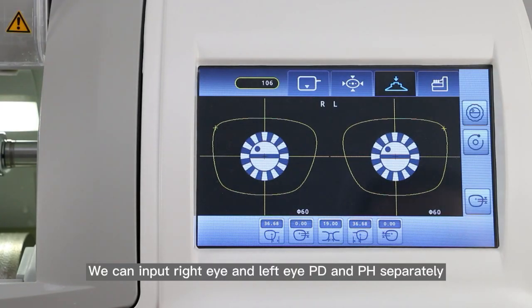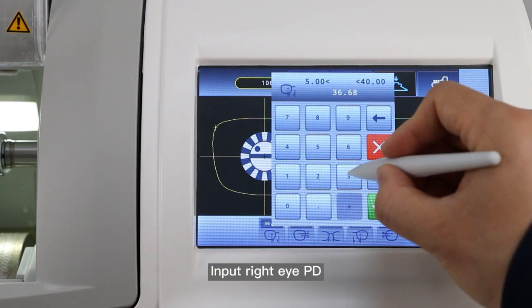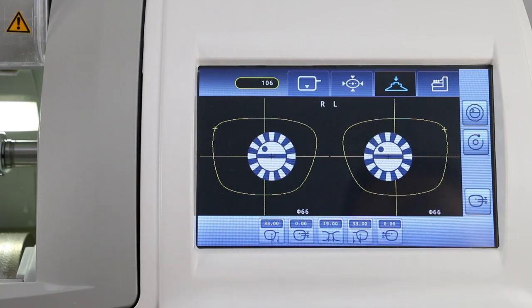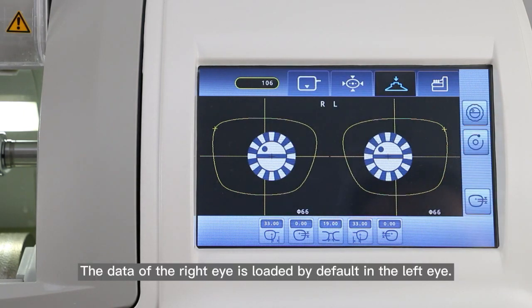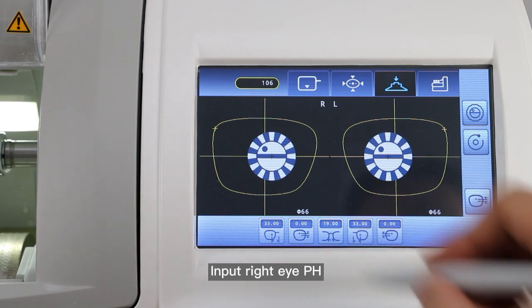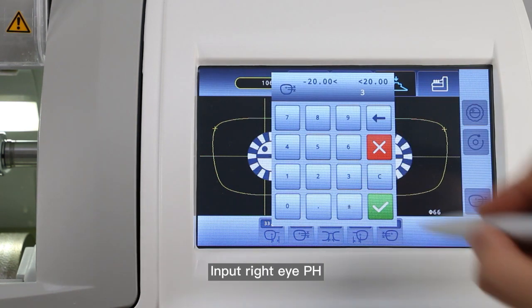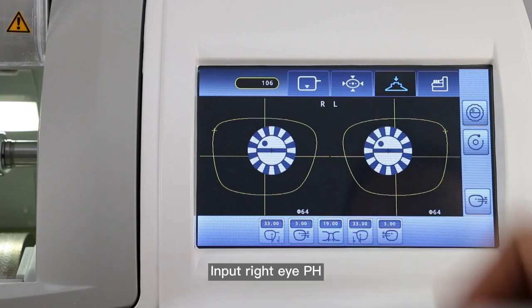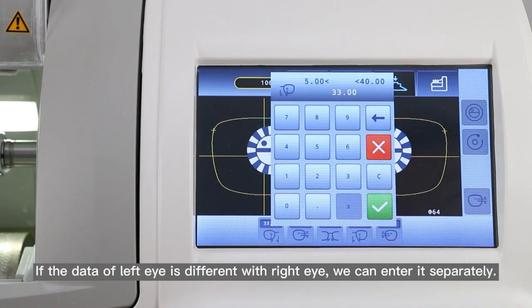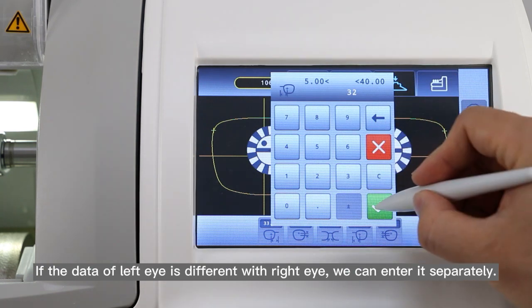We can input right eye and left eye PD and PH separately. Input right eye PD. The data of the right eye is loaded by default in the left eye. Input right eye PH. If the data of the left eye is different from the right eye, we can enter it separately.